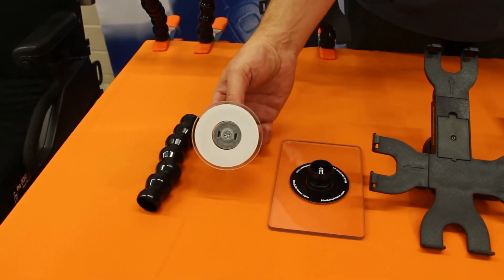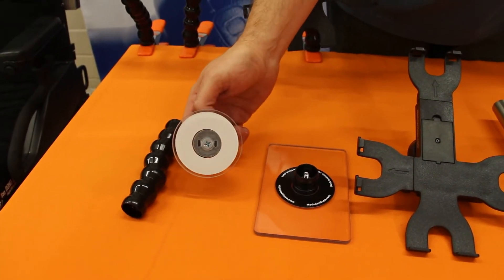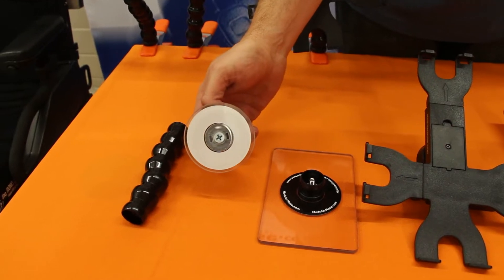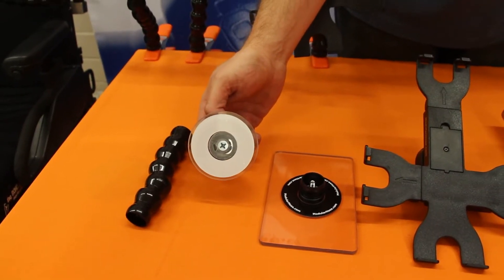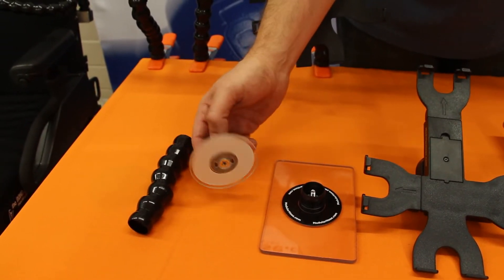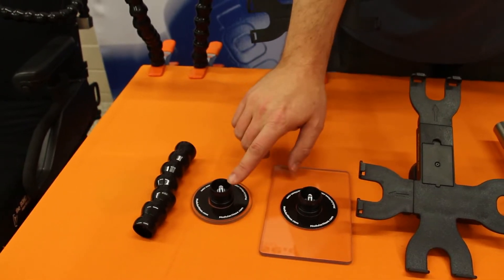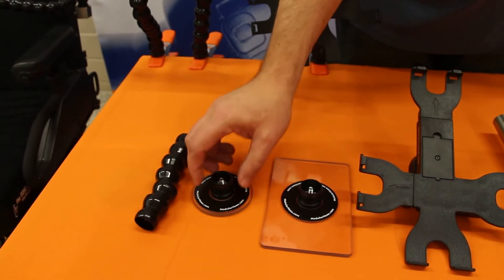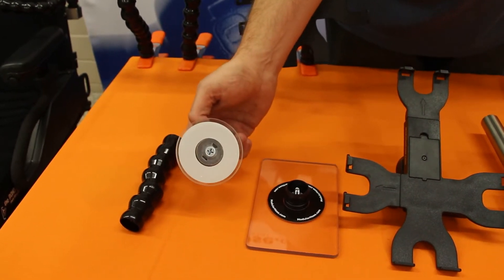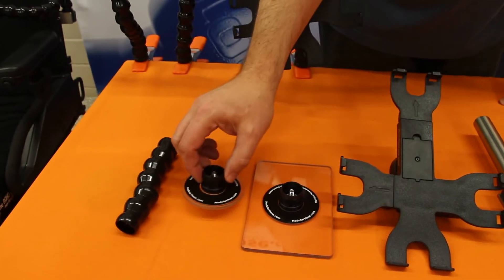This is a three-inch polycarbonate plastic disc. This disc is very commonly used for switch mounting, or for holding lightweight devices such as a flashlight, a lightweight telephone, or an iPhone. When you buy these discs, the fixed mount piece comes already attached, so it's ready to snap into your lock line. It also comes in kits with velcro discs included.